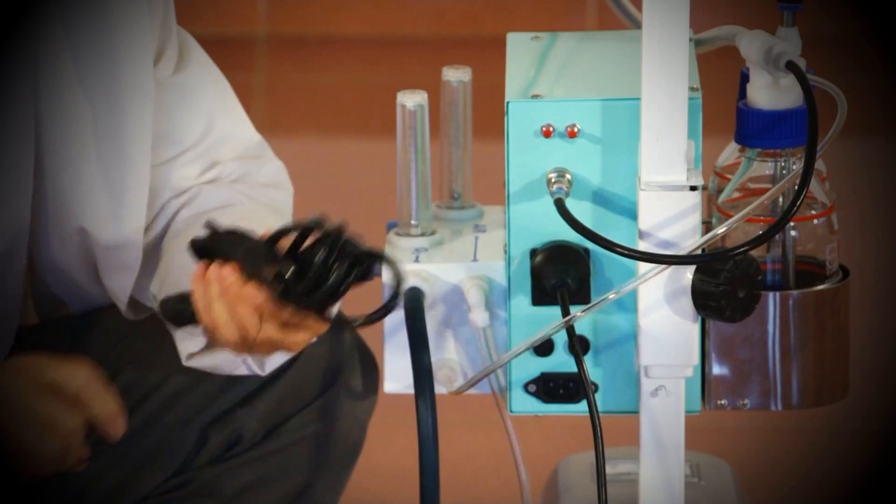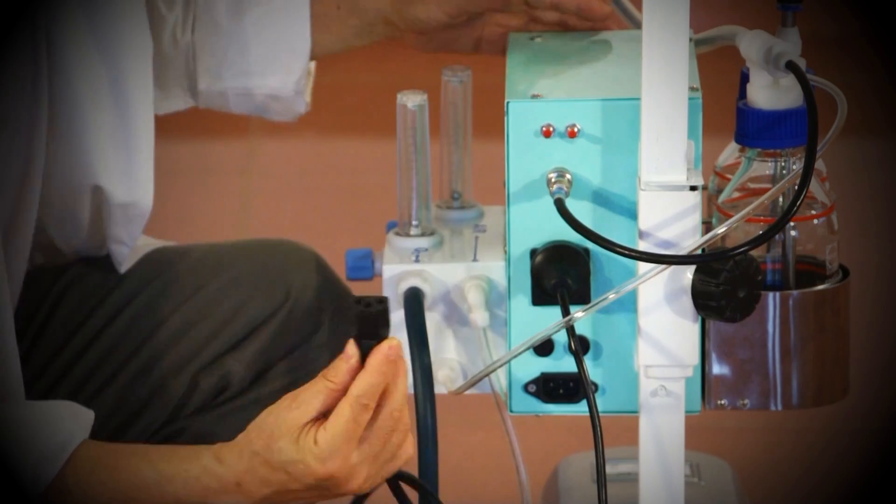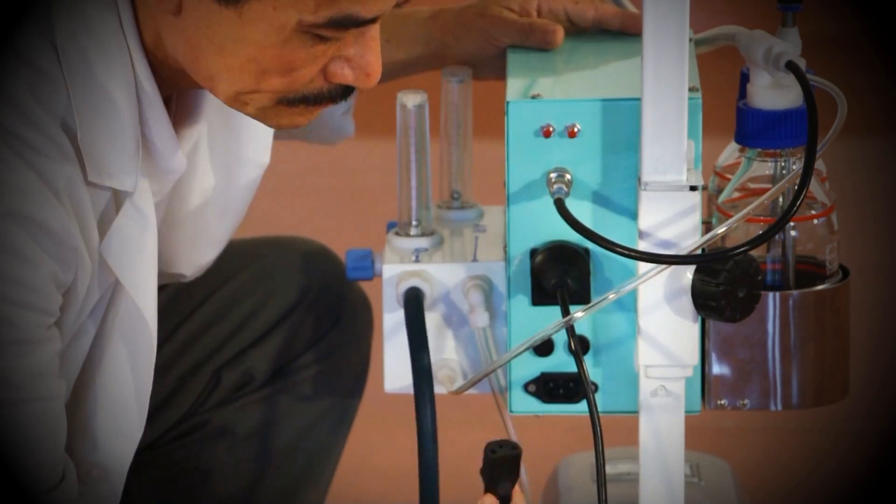Finally, connect the power cord to the control box. The CPAP is now ready to be connected to the power and oxygen sources.